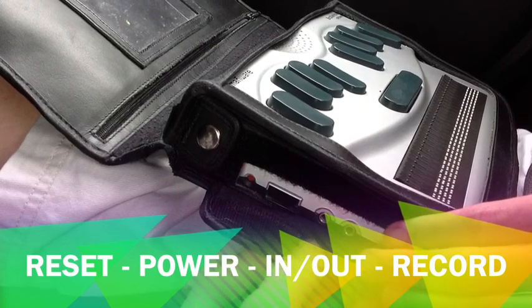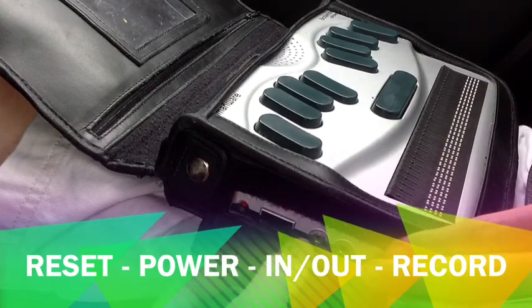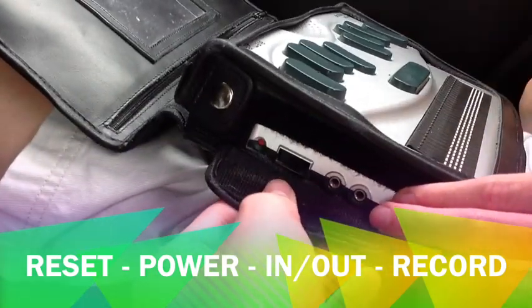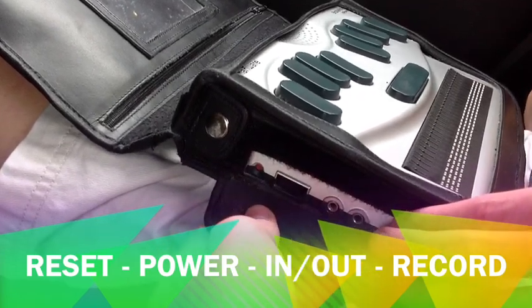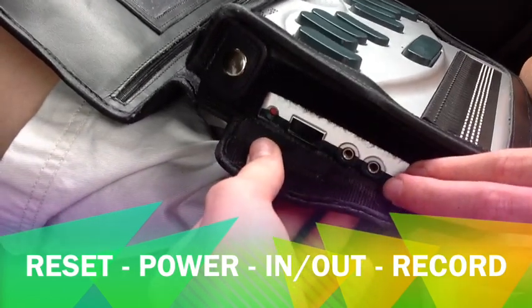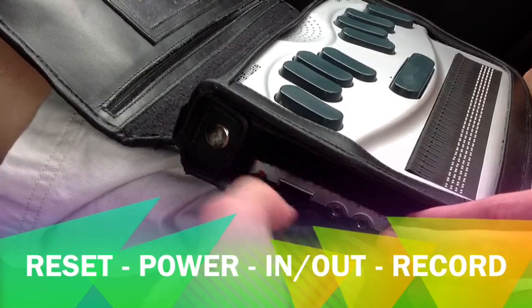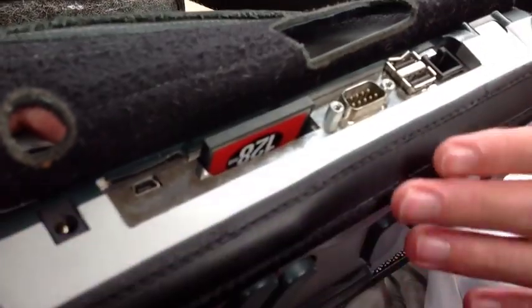It looks like you have different headphone and microphone inputs. You have a headphone output socket where you plug in standard headphones, or it can even accept stereo speakers to output sound. You also have a microphone input to connect to a standard external microphone — a 3.5mm jack like you'd plug into a microphone port on your computer. Moving up, you have the power switch, and above it a red button recessed in a roundish hole, which is the reset button — used to reboot the BrailleNote software in cases where it stops or hangs.